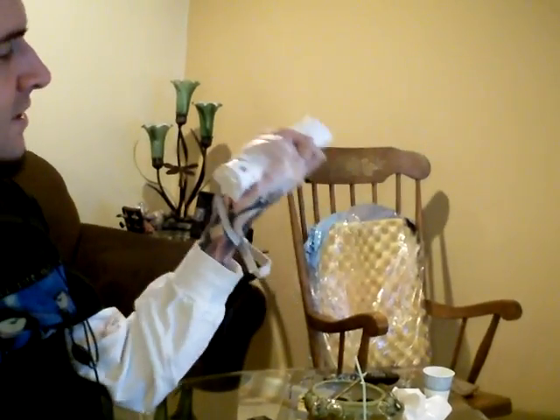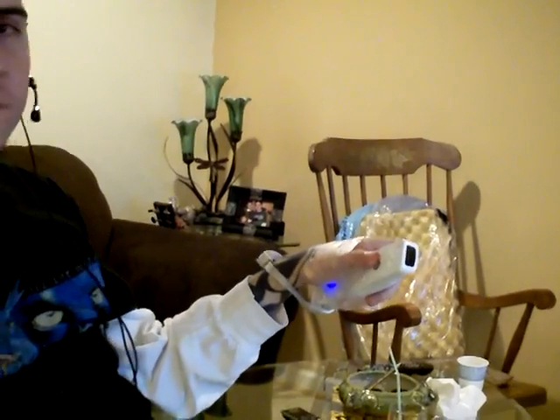Can you come in front of me and get a close-up on my hand? Okay, can you hit record? Is it recording? Check this out — this is Robert Florio using my free hand system surgery I had when I was 18. Was it 12 years later?